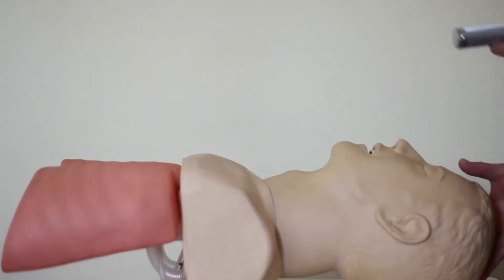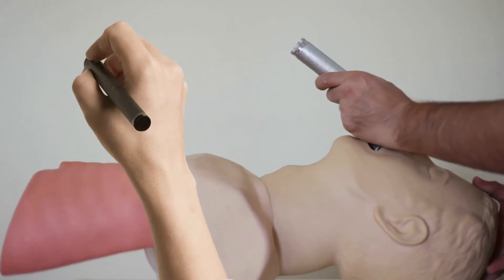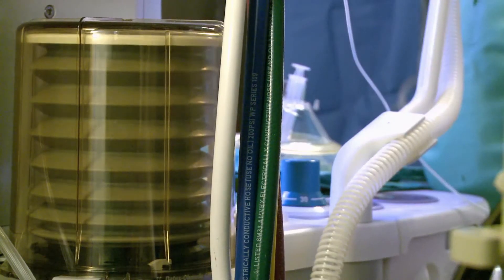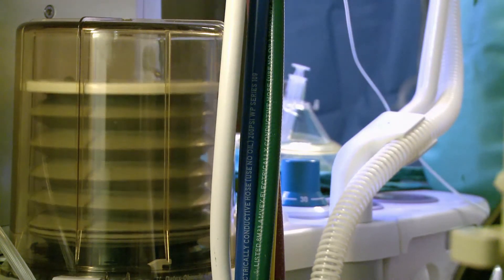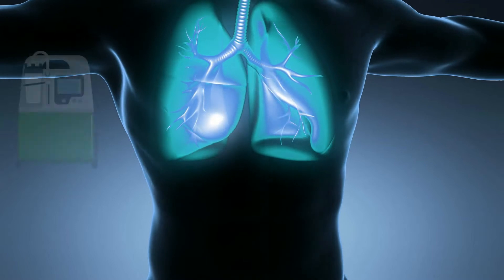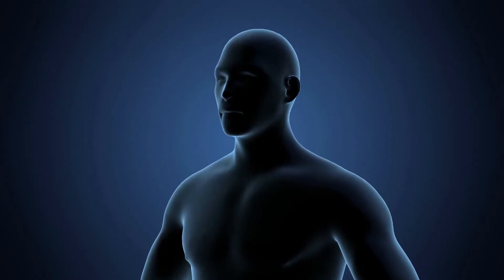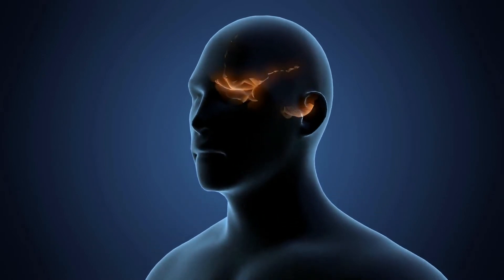The process of placing a breathing tube is called intubation, and this is followed by mechanical ventilation where the breathing tube is hooked up to a ventilator. The breathing tube can also be used as a conduit to administer anesthesia medications. Anesthetic gases are delivered into the lungs from a ventilator and then reach the brain where the medicine works.